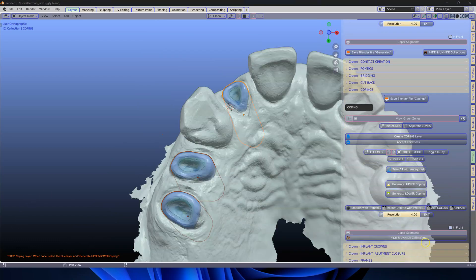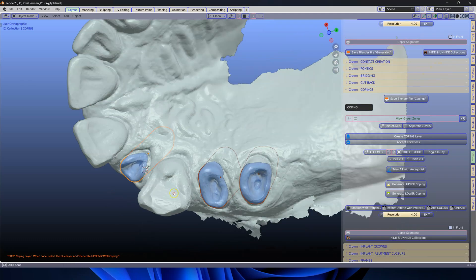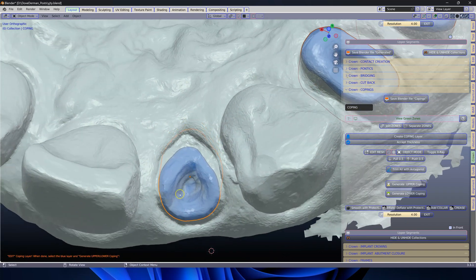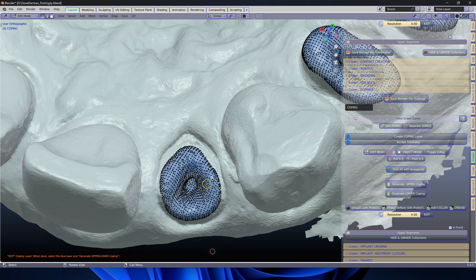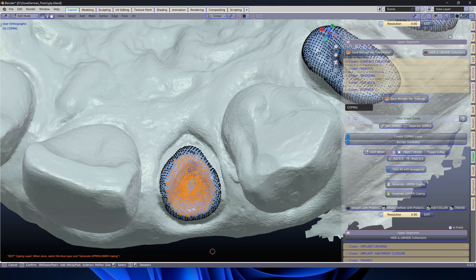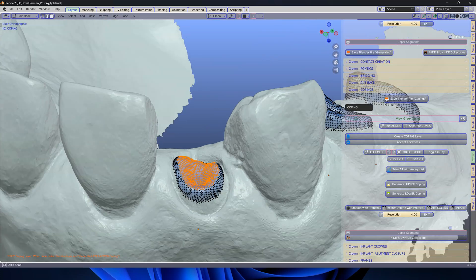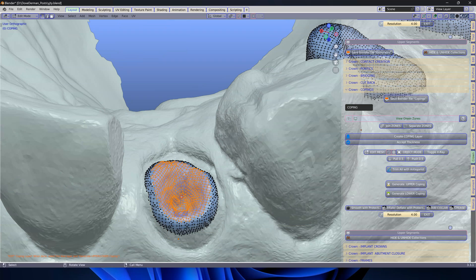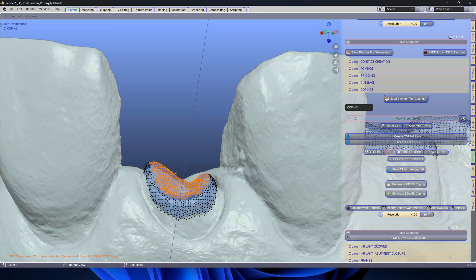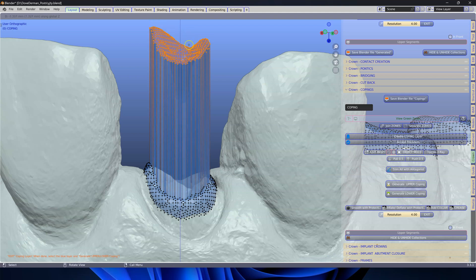Next we're going to hide these safety zones — I don't need to see them at this stage. What I do want to do is take this mesh structure and extrude it upwards. With it being selected, I'm going to make sure the magnet tool is off — that's very very important. We want to then select a whole number of vertices, brushing something like this to ensure we get all of them. Then we're going to extrude them in the Z direction. I'm going to click E, Z, and then you'll see the blue axis line coming up, and we're going to grab them upwards.